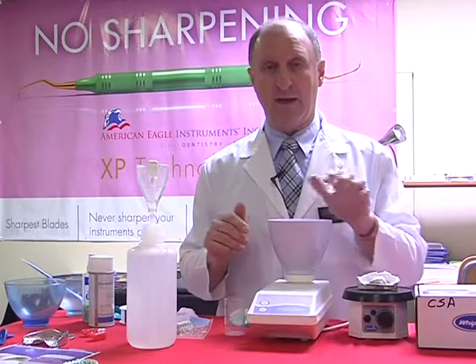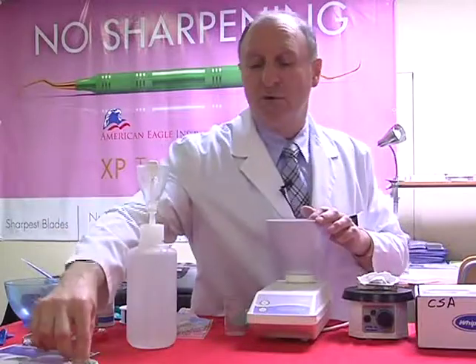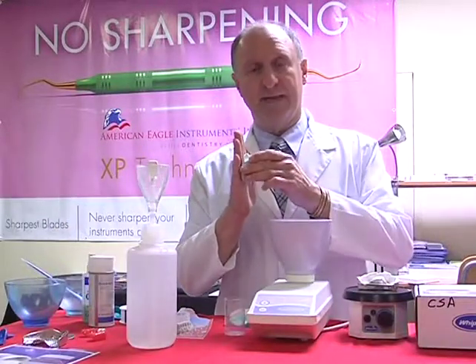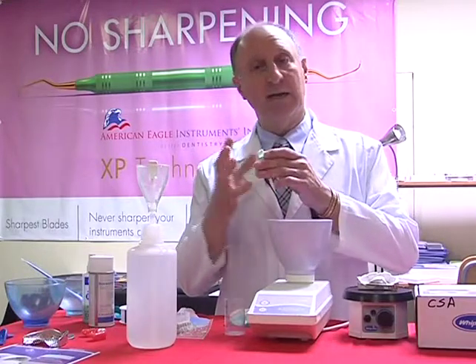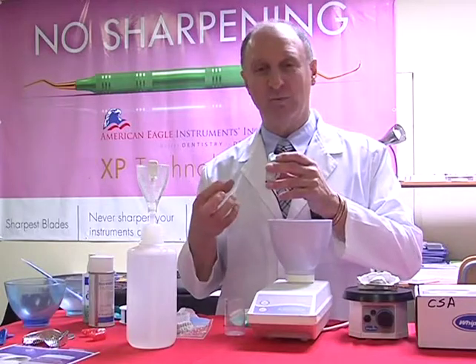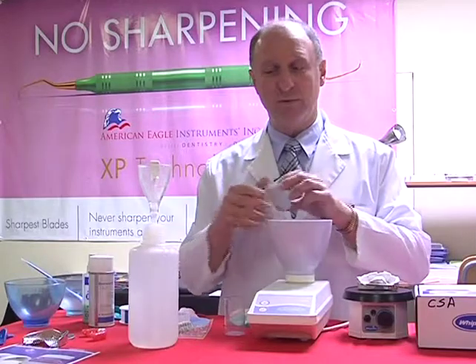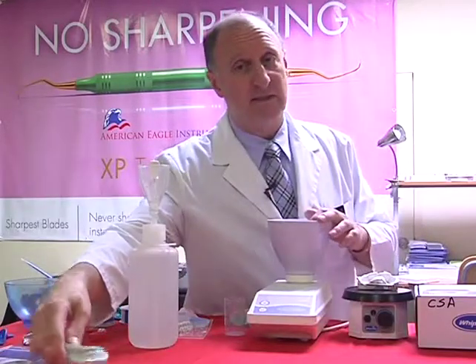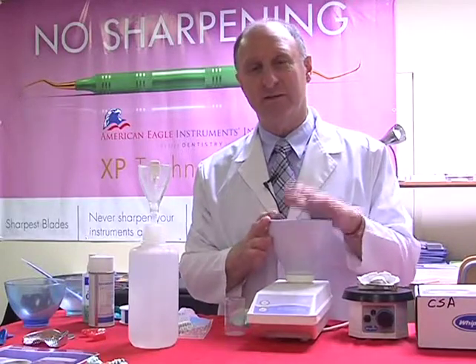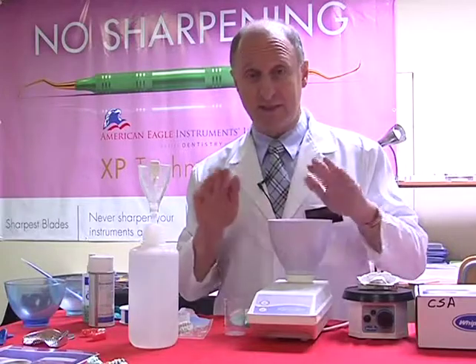Alternatively, there's something else called slurry water. If we have a model trimmer in the office, we grind against the surface of the model trimmer and collect the grindings, which come in like a slurry, a sort of milky colored water. Collect that, and instead of using our regular water, use the slurry water to mix. It accelerates the stone. The only problem with that is there's a little more contraction and expansion, so it's changing the dimensional stability of the stone, whereas the table salt doesn't change that at all.